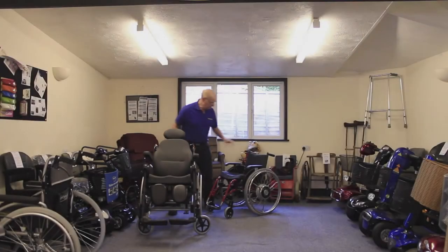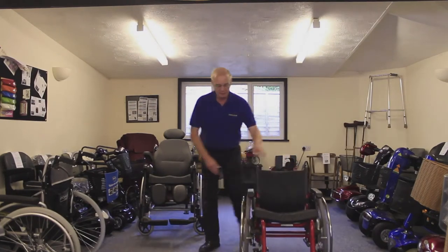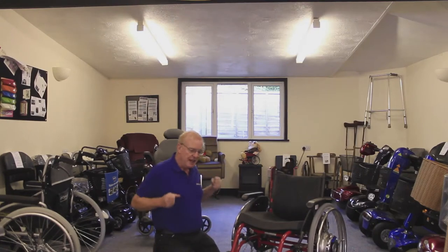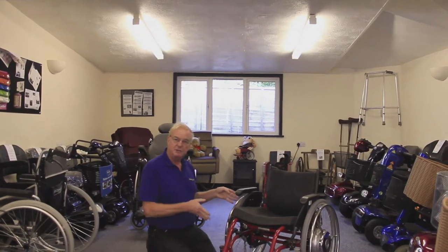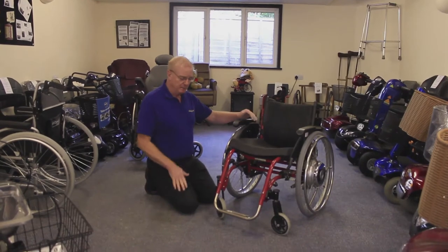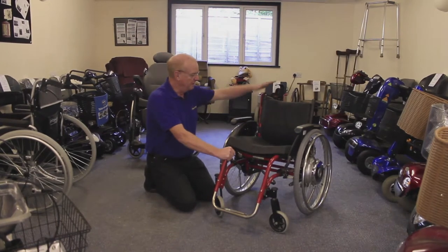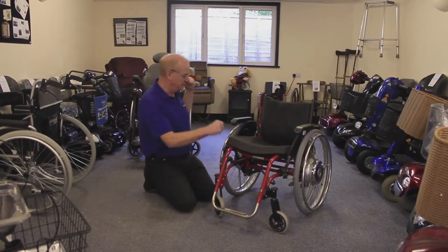The fourth chair is something for the active user. The frame is solid — the chair doesn't fold, it's a very rigid construction. Every bit of power the person puts into the hand rim is put into pushing the chair along — no distortion, nothing going on, cut back to a bare minimum. No foot rests, just a bar. Arm rests are very low, sometimes not at all. The backrest is also very low to allow the person plenty of movement and freedom.